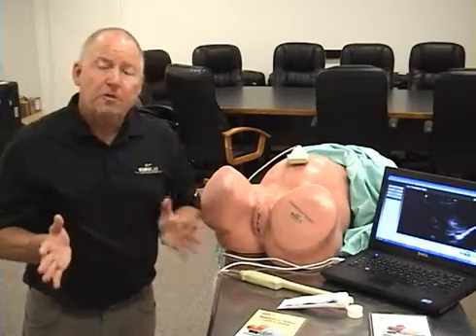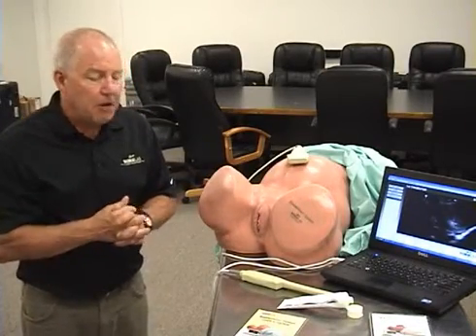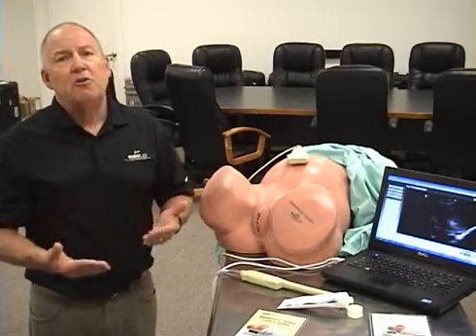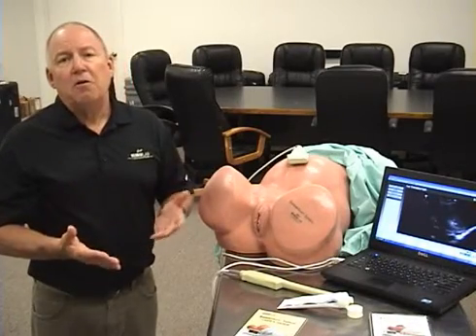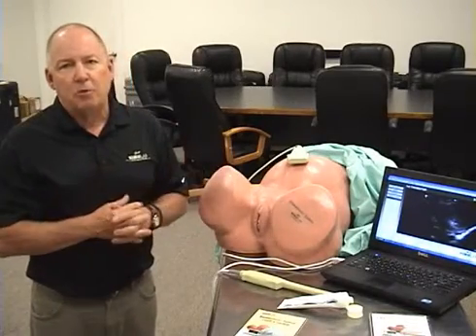So this is a short video that explains what Simulab can do. It's a very popular system that's very unique in the marketplace, that really there is no system available anywhere that has the price point and the value of showing a number of abnormal patients.